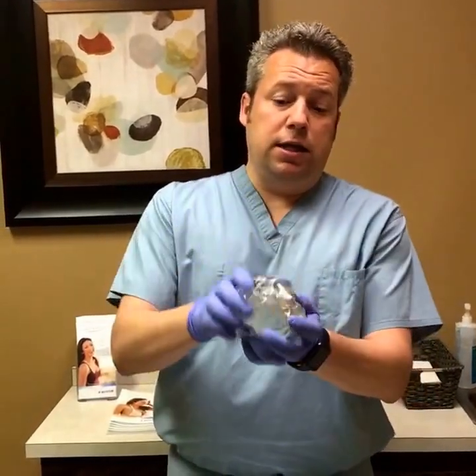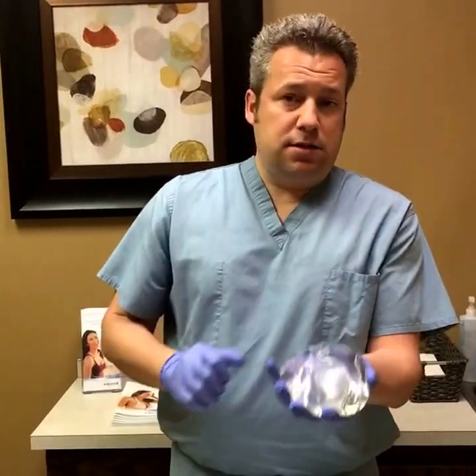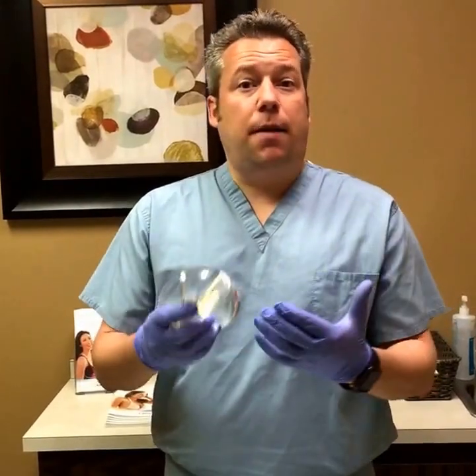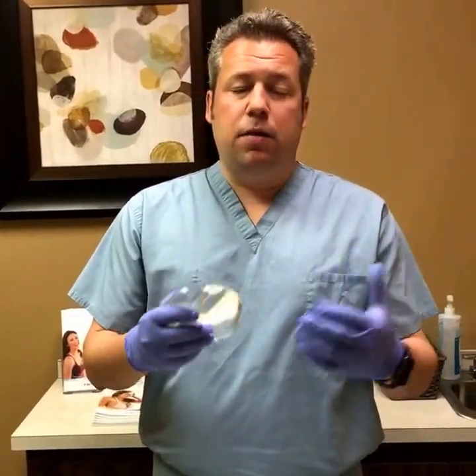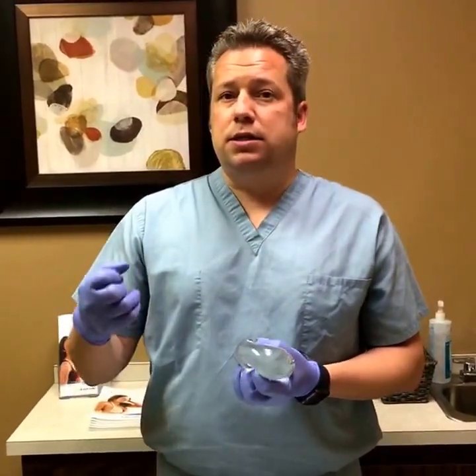As you can see it's got silicone in it and they're very sturdy. Inside this is the silicone gel — that's called a highly cohesive gel, similar to what you hear about with gummy bear implants. Now, gummy bear implants — the difference between a highly cohesive gel and a gummy bear implant is that the gummy bear is more of an anatomic shape. The gummy bear implant is a true, almost hard silicone.